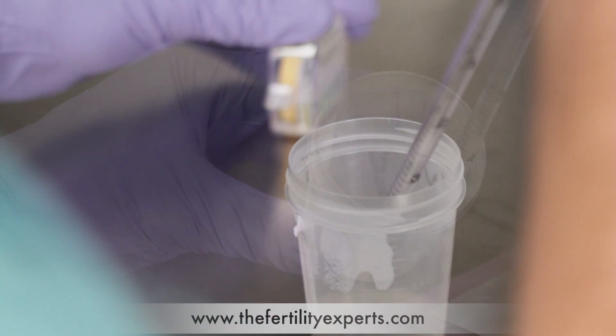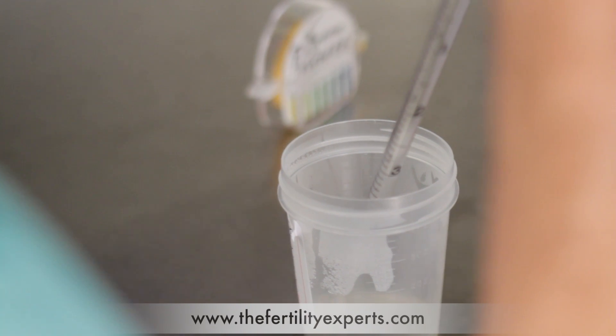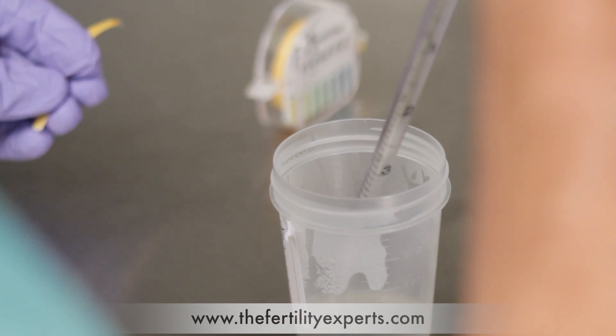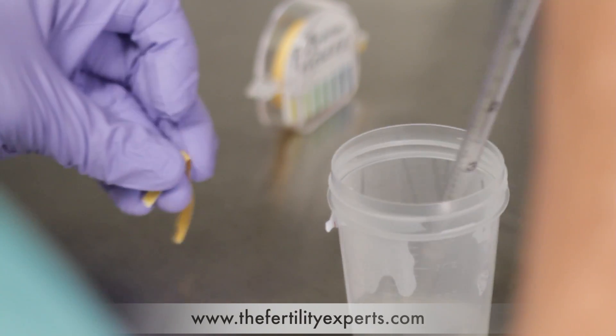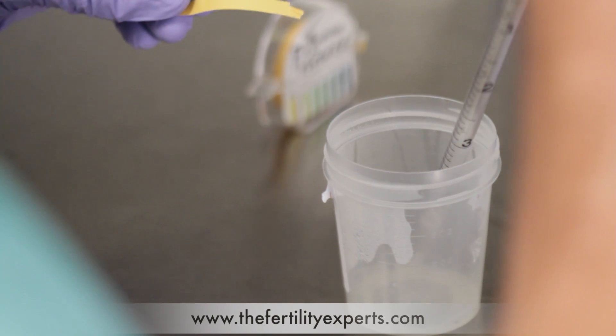At this time, we'll be able to get the volume of the sample, assess the viscosity of the sample, and finally get the pH of the sample.